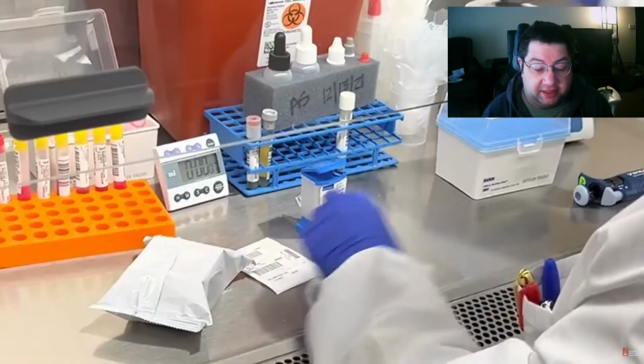That's a lot of the reason that the waiting rooms, or the emergency rooms, were backed up, because they were waiting for these COVID tests before they could send patients to the floors. But that little cartridge for PCR testing really changed pretty much everything.